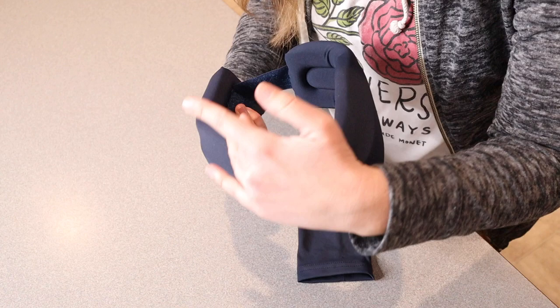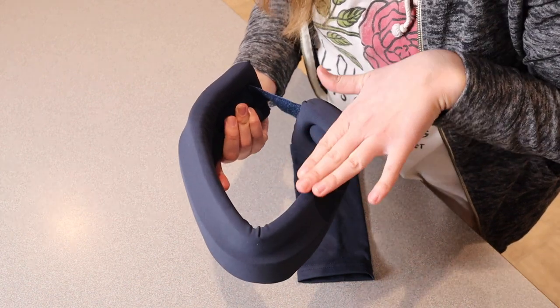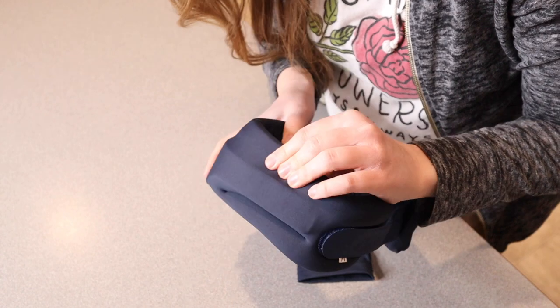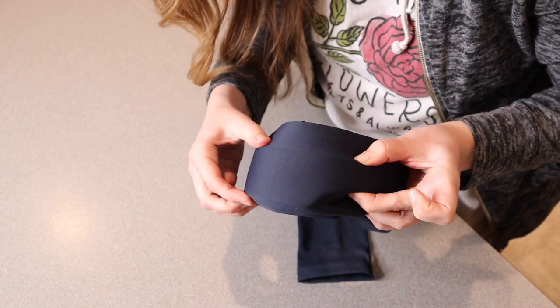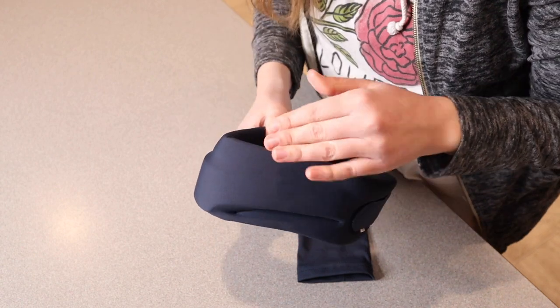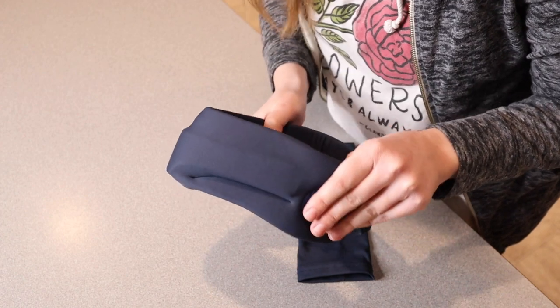It has a V-shape kind of right in here where it goes down, which is going to mesh with your natural neck shape and around your jawline. I also want to point out that this is made out of really soft spongy material all the way around, but it has a harder support right through the middle — you can kind of see the outside of the harder support right along here. I feel like this is a nice medium between having comfort and also having that effective support that you would want with a neck brace.